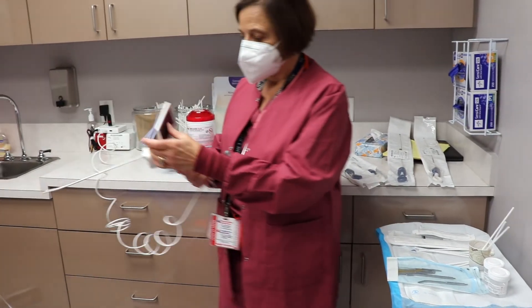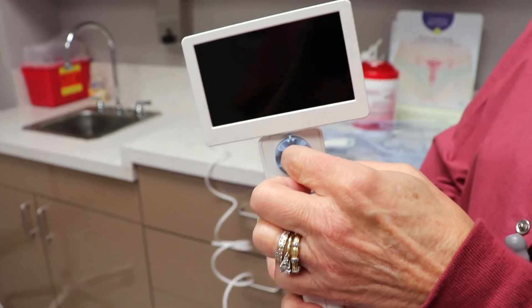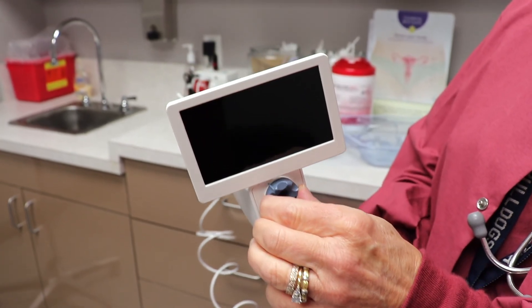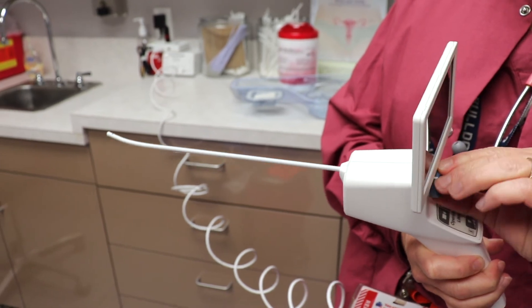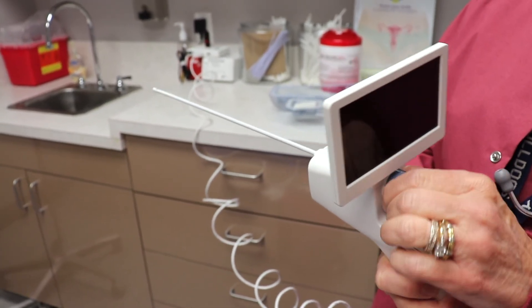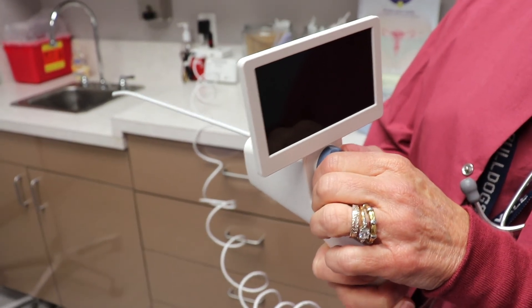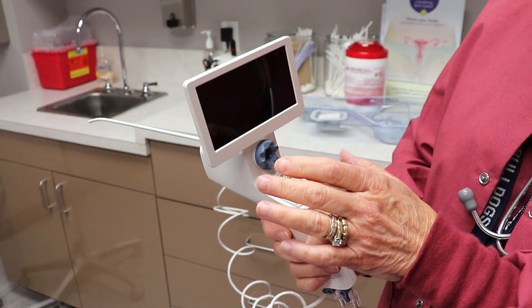We have all kinds of instruments to operate through the hysteroscope. The hysteroscope has an operating port — this — and we can put instruments through that. By turning this button we can change the orientation of the scope. If we want to look up at the patient's left cornua we turn it this way; if they're retroverted we look down this way. You never have to turn the scope all the way around — it's very easy to use.